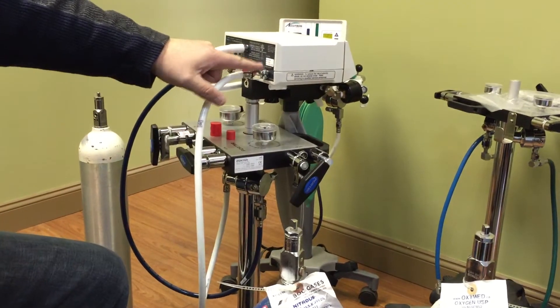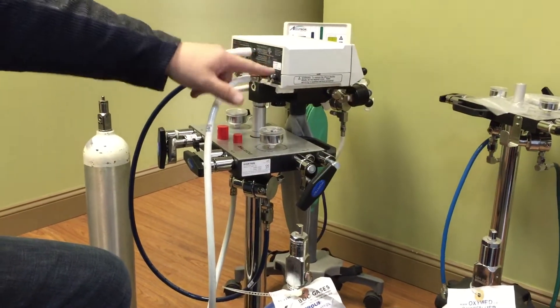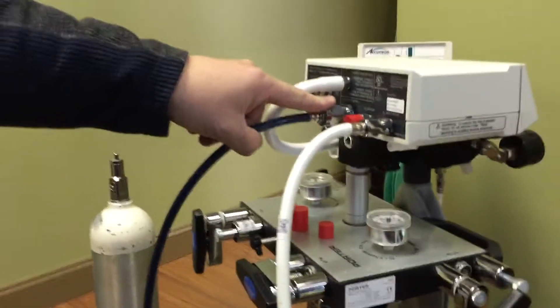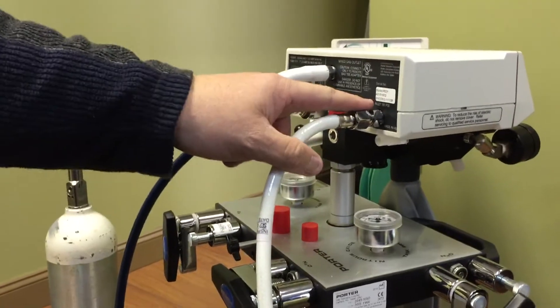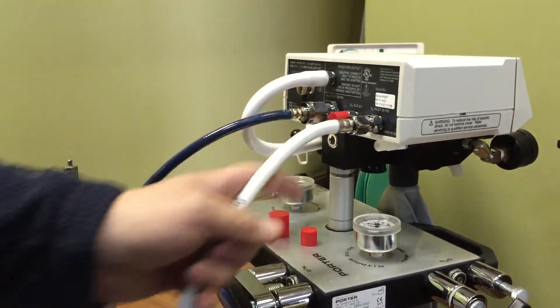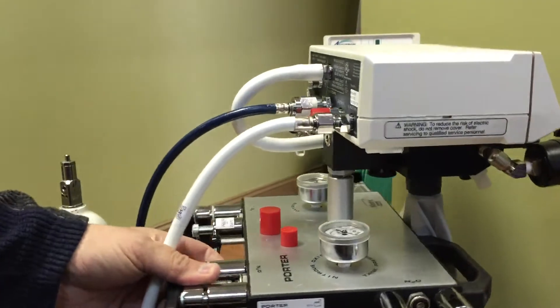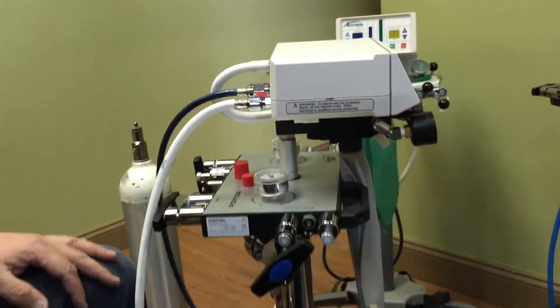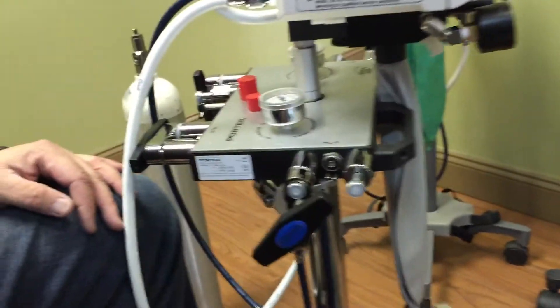Now, as we talked about before, there's safety here. You cannot mix oxygen and nitrous. It's impossible. All the nitrous connections are always going to be this size, and oxygen are always going to be this size. You have the same kind of safety features built into the stand, and it's a standard throughout North America.